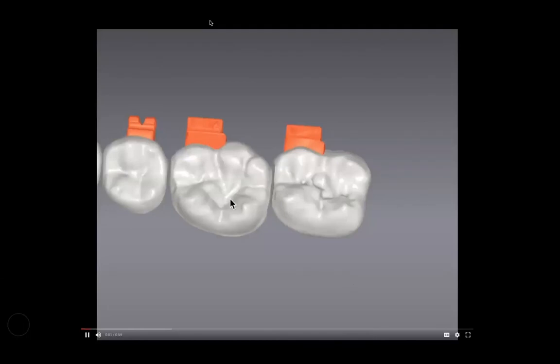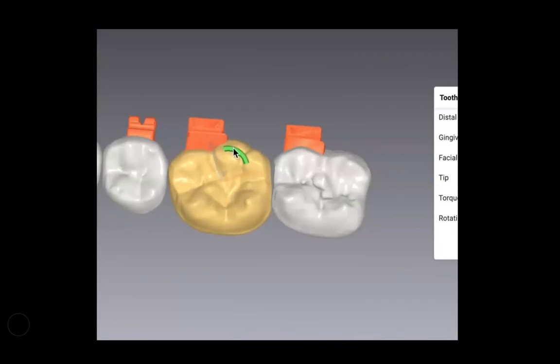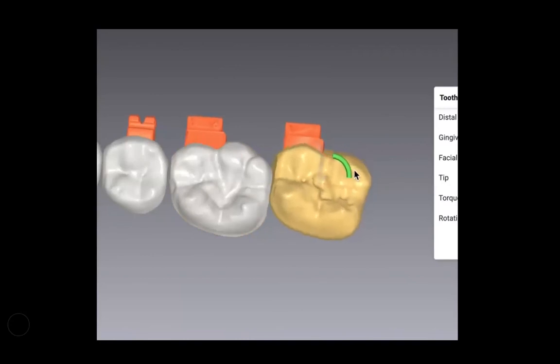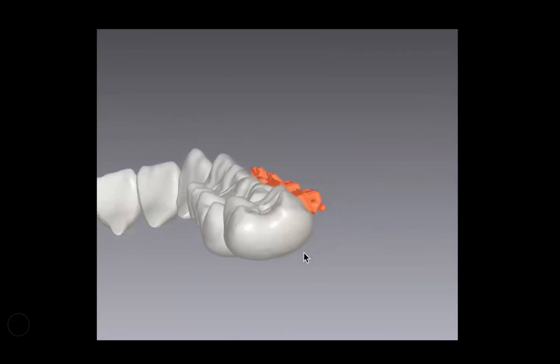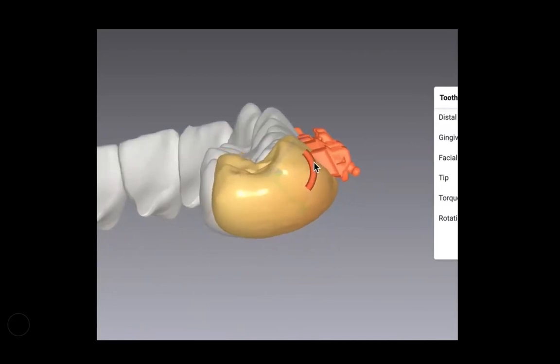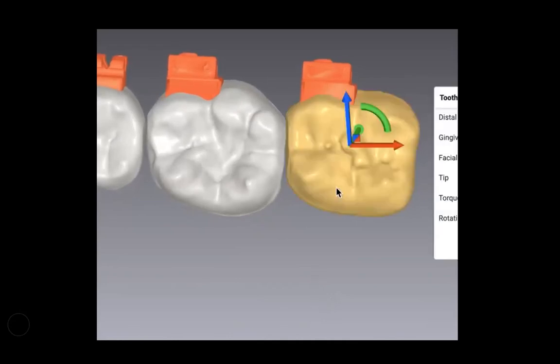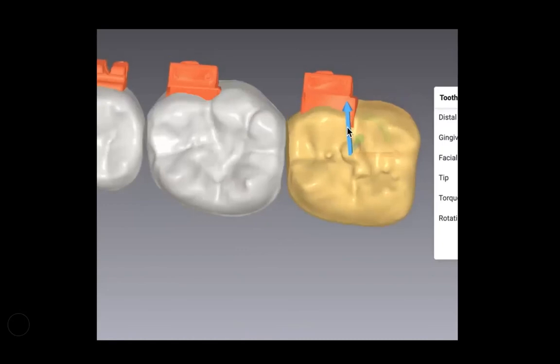Let's take a look at this quick video. You can see how we're able to completely control the molars using the software — whether that be with rotation. As we rotate the tooth, the bracket will adapt and change to the buccal surface. We can also change the torque, and as we change the torque and rotation, we'll note that the brackets mesial to the 7 will also adapt to maintain that straight wire experience so that all slots continue to line up with each other. Having this amount of control over torque is a unique and empowering experience in treatment planning that we have for the first time ever. This is also showing the same concept in in-and-out movement.